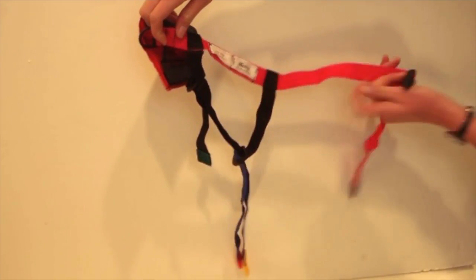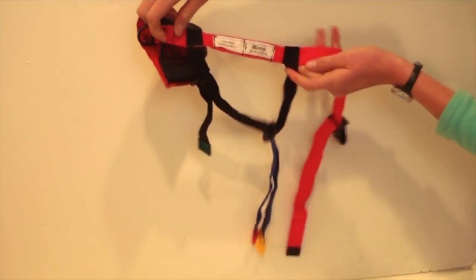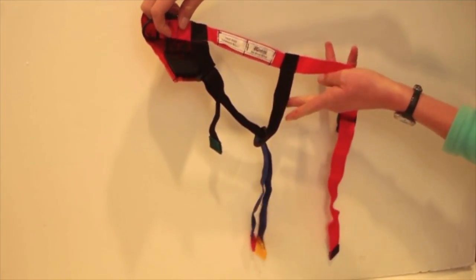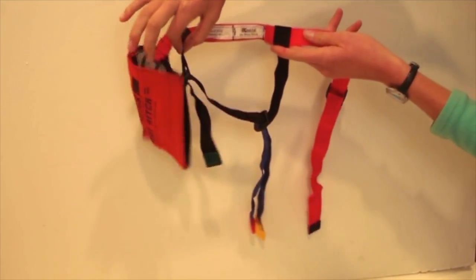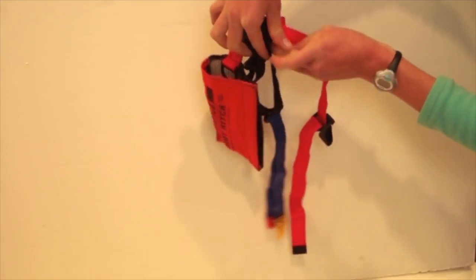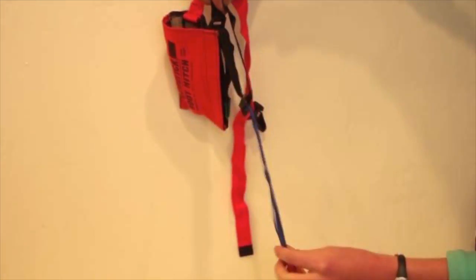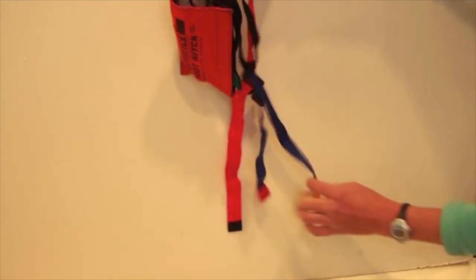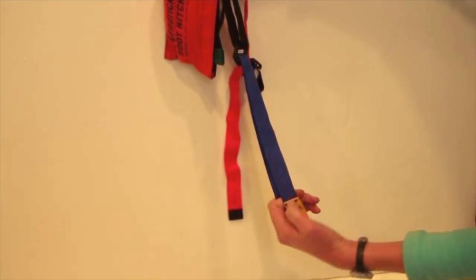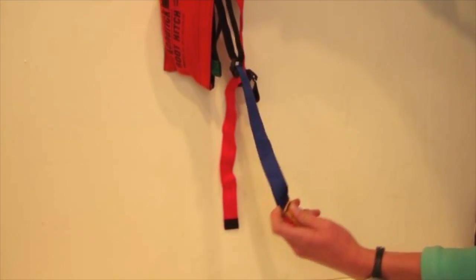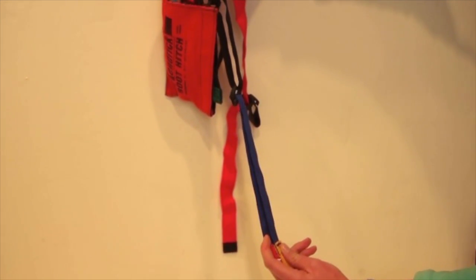The black strap going underneath it goes under the foot, and then the blue strap coming out from the middle of the black strap is hanging down. Start out with that just about equal length, just as it is now. The straps don't look like that, just adjust them a little until they do.